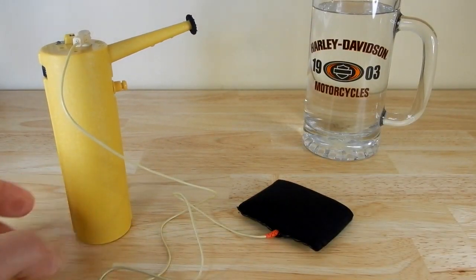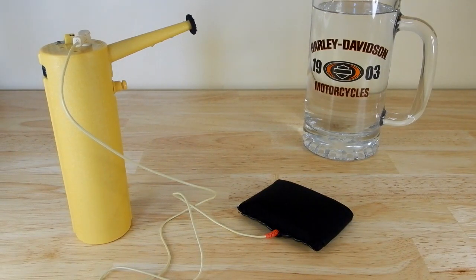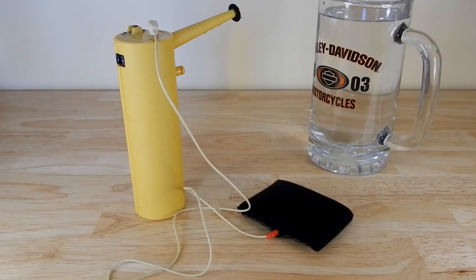Use this under the direction of a professional, which I am not. This is a nice little unit. When you saw my fingers flinch like that, you don't want it to be really painful — you just want to feel that current. When I was using this on the nerve areas of my face that the therapist showed me, it really did feel good, and it really helped stimulate the nerves affected by the Bell's Palsy. I've also used this for muscular areas as well.